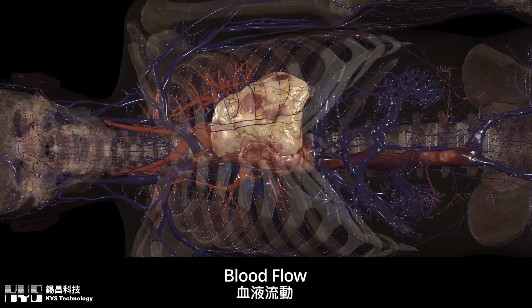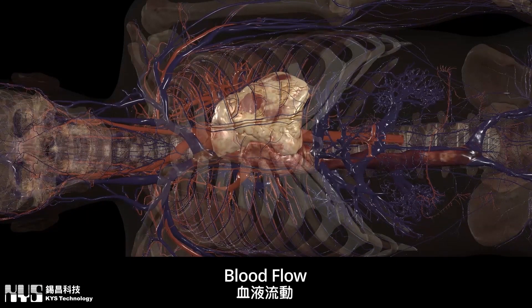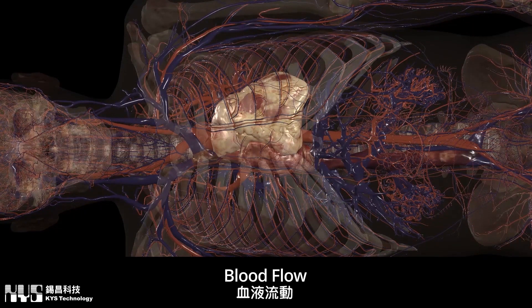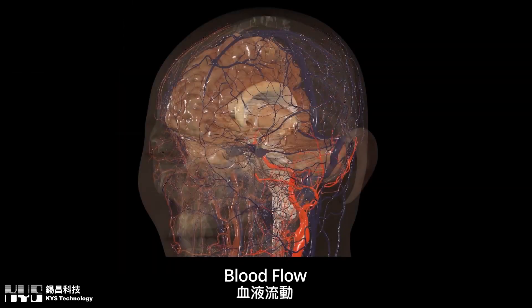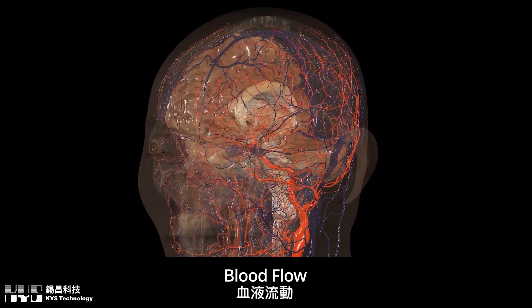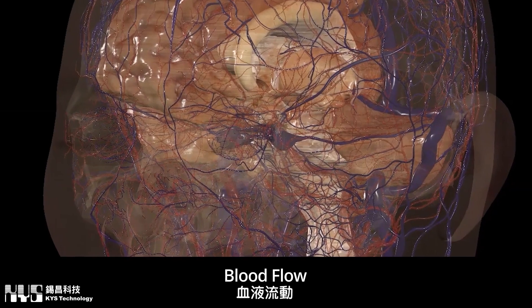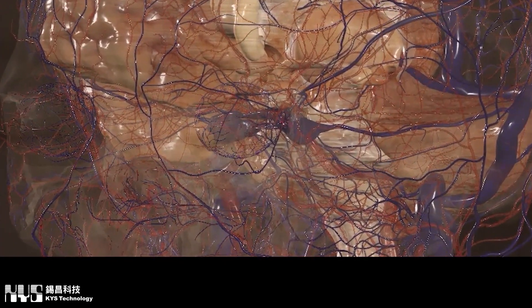The latest enhancements to our Anatomage bodies include simulations such as detailed blood flow tools, including vascular grow, that simulate an intricate roadmap of vessels and their branches across the entire cadaver's body. Blood particles can also be simulated for visualization.